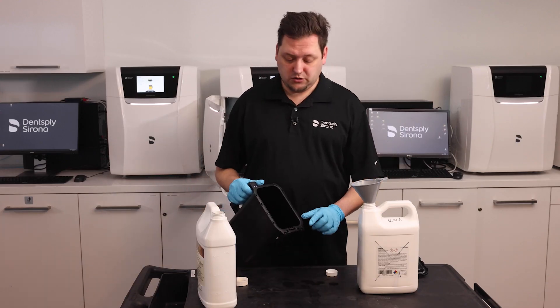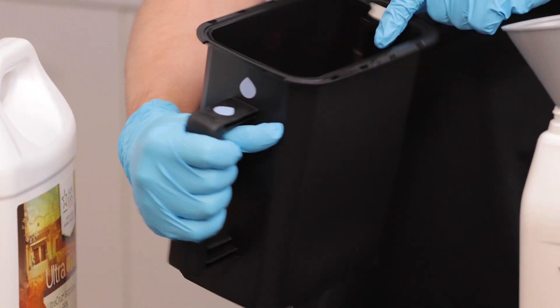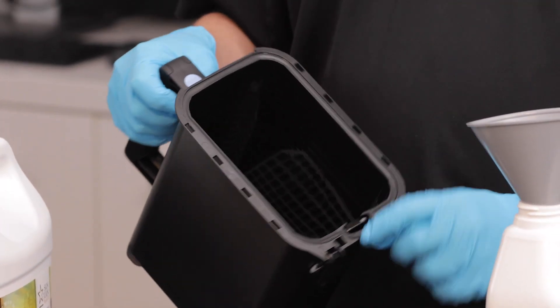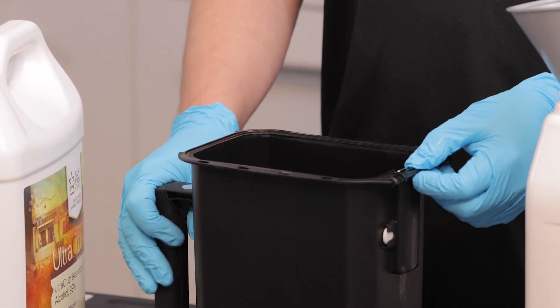Now I'm ready to refill it. Before I do, I want to make sure I still have the red bobber inside and my metal cage. The tab is inserted properly into the slot at the top.